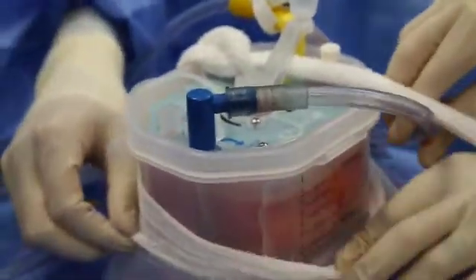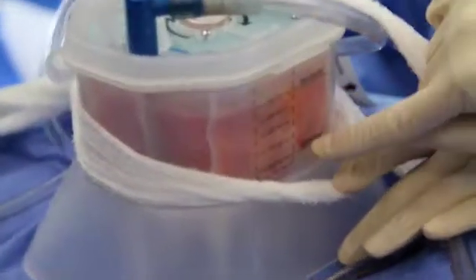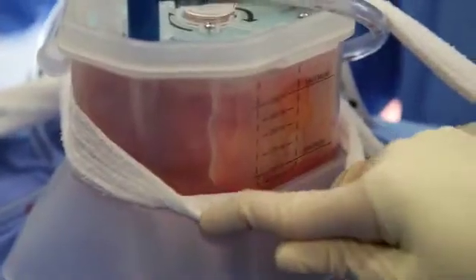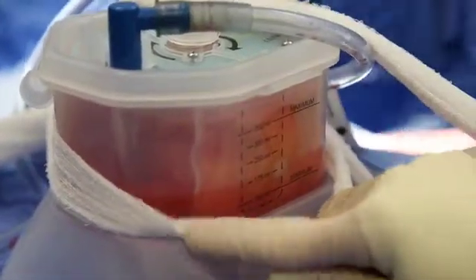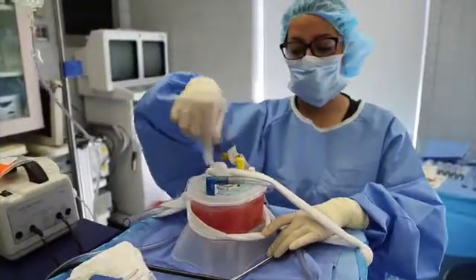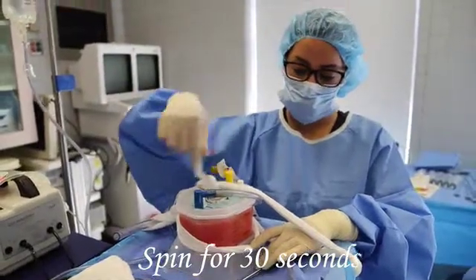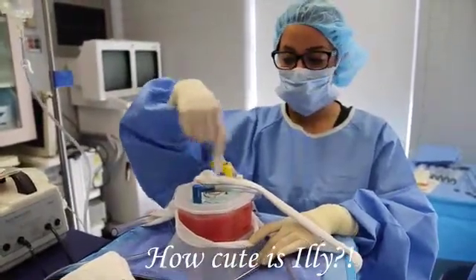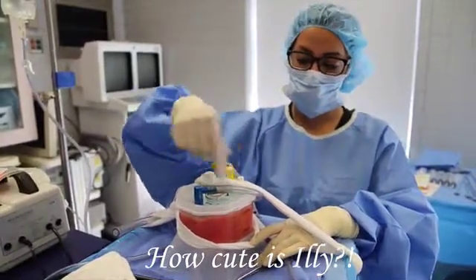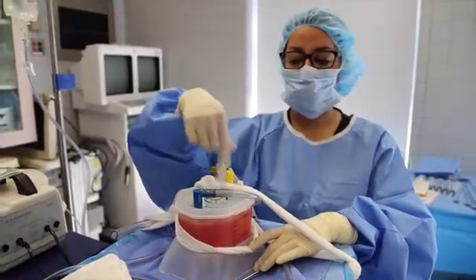Illy will demonstrate how we do that. The water is going into the outside lumen, which is the outside space. There it goes. You do that until you hit the top, and then you spin it for 30 seconds. And this has these blades in it that catch all of the junky material that you don't want to put back in — the stuff that can mess up mammograms or just cause little fat necrosis and stuff like that.